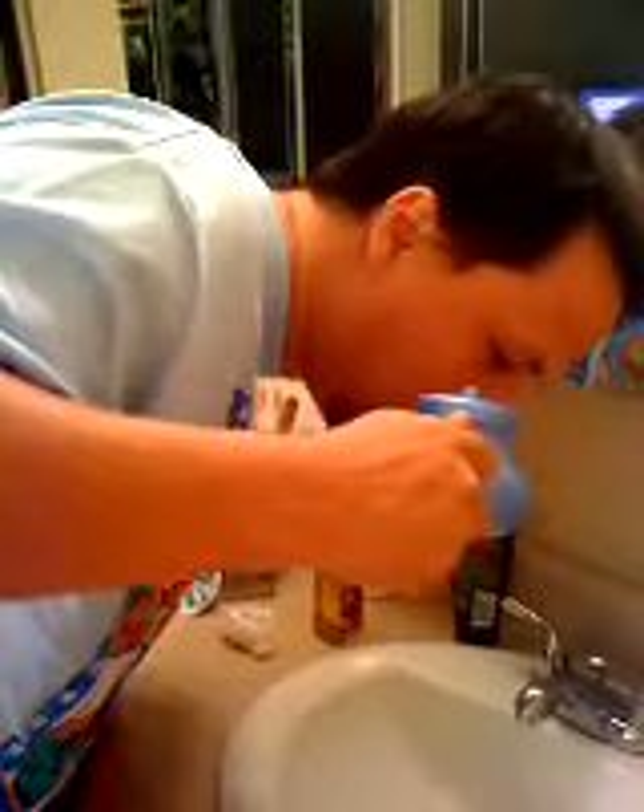I've got to do the other side. Oh, Jesus Christ. Okay, let me change angles here. That was fucking gross, bro. Okay, so same thing — go forward, to the side. Does that work? Put it up your nose hole like a tampon. Oh jeez, oh my God. This is going to be out of my mouth too.